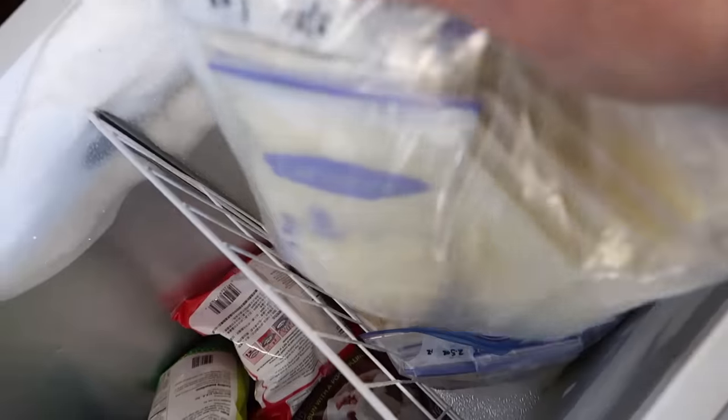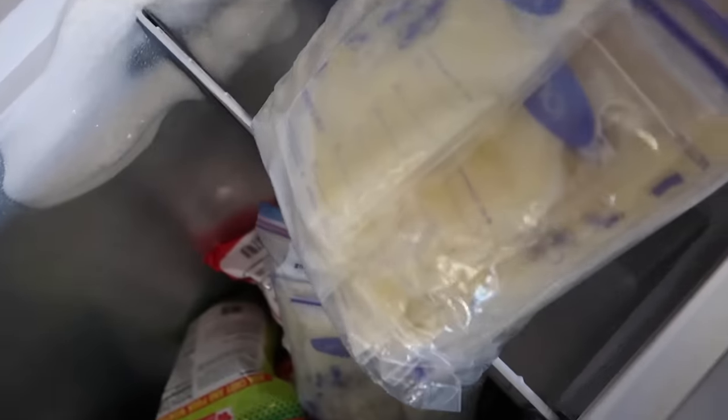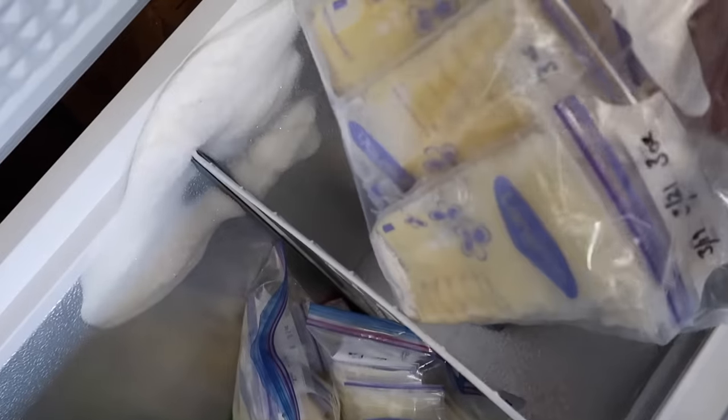I love this thing so much and I would highly recommend it to any new breastfeeding mom out there. As a second time breastfeeding mom, I was nervous about getting mastitis again and getting plugged ducts and all of those issues that you run into when you are breastfeeding, because all of them happened to me with my first baby. I 100% believe that this product is one of the primary reasons I didn't run into any of those problems — every single time I nursed my baby, I hooked this thing up to the other side, it extracted out all the milk, so I didn't have any excess sitting in there to allow those problems to crop up. And as a bonus, I built up a huge stash of milk for my baby, all collected with my Haakaa pump. I did not even break out my electric breast pump at all during my breastfeeding journey in the last 10 months.